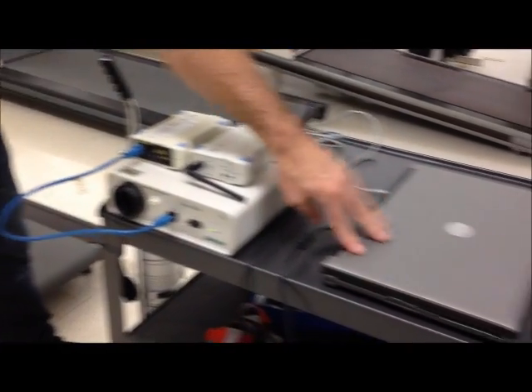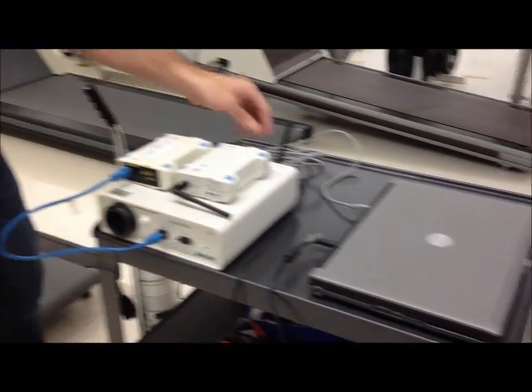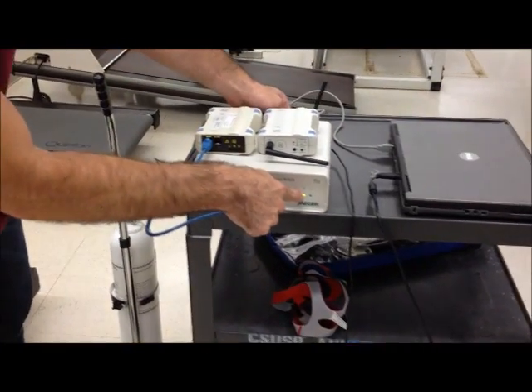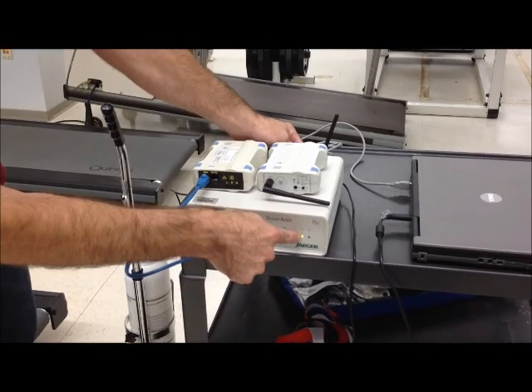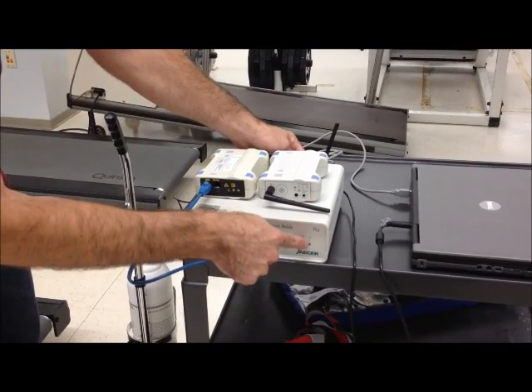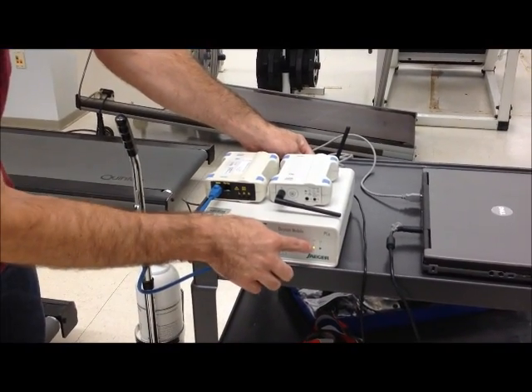Make sure that the computer is plugged into the power and that the receiving unit is plugged into power through the power cord. You can see this full functioning green light. If it's not full functioning it means it's not plugged into power so it will be low functioning. It only works with full functioning.